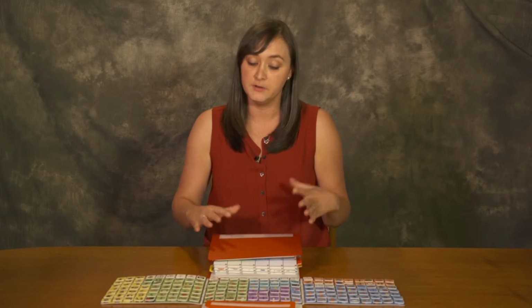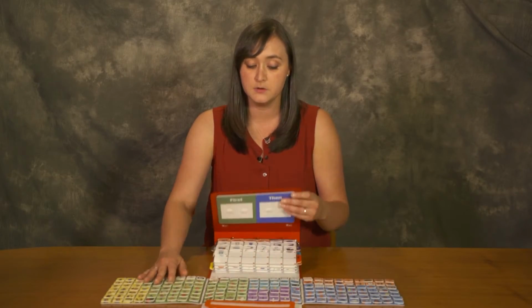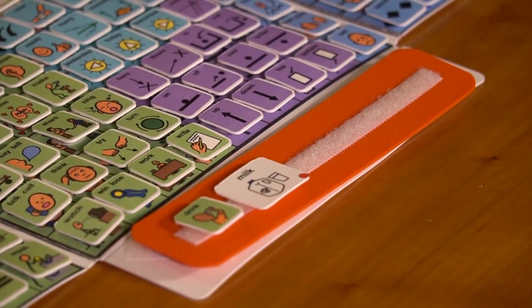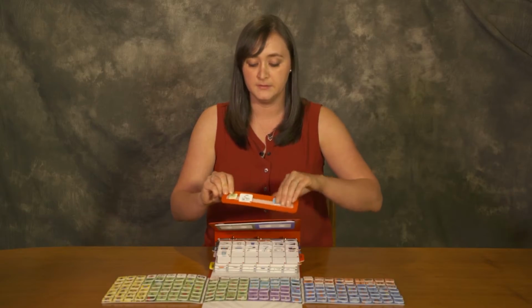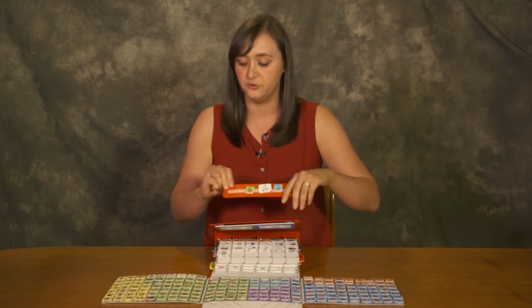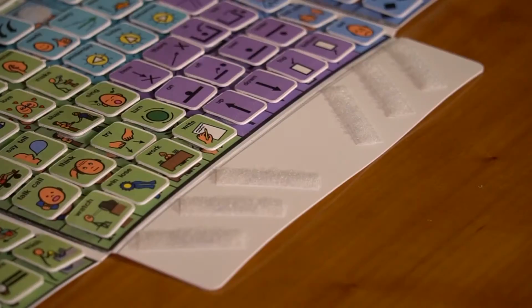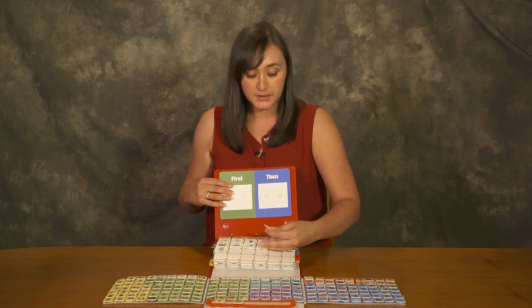An individual can continue to put words together and increase their sentence length on the communication card. So if an individual is working at the three-word level, they may use three icons from the core vocabulary foldout and binder inserts. Drink, milk, now. Drink milk now. Or maybe at the four-word level, they extend their utterance to I drink milk now.